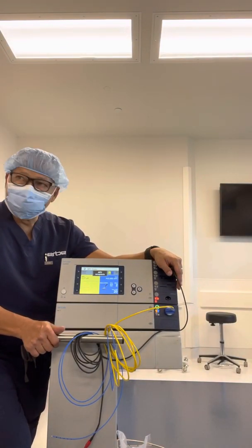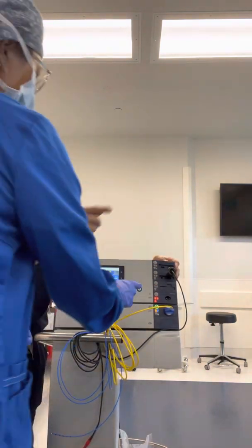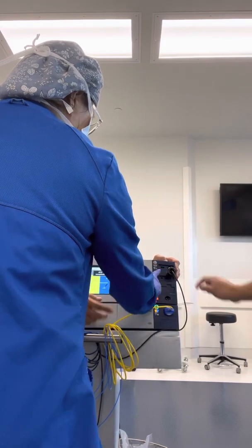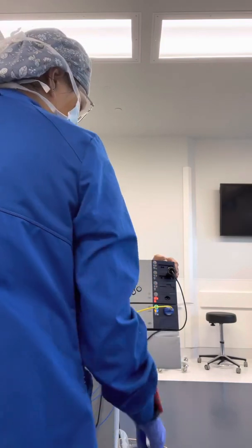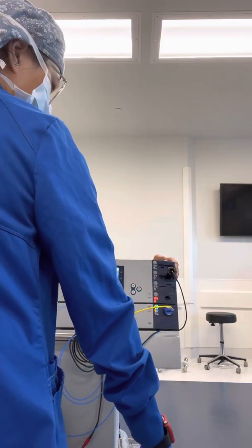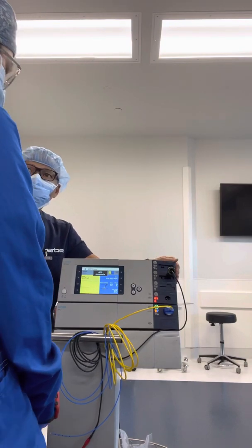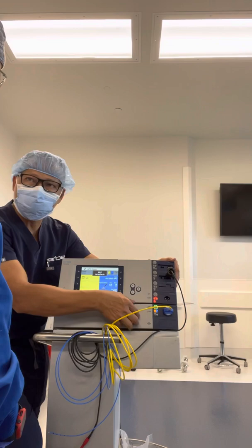To go back and get the GoPro — it was up here earlier. What extra do you need to do? Nothing extra. Whatever program you select, the unit turns on the correct foot pedal. So let's say we just use APC.